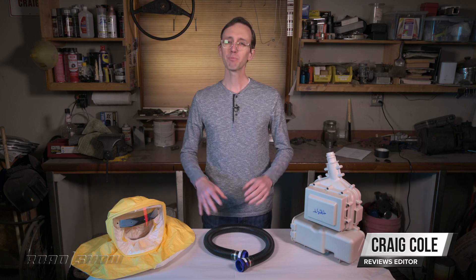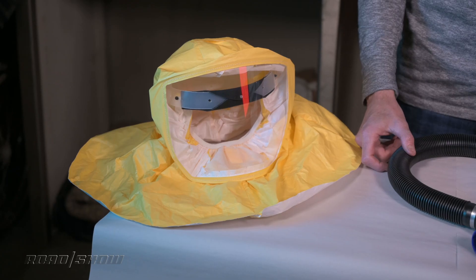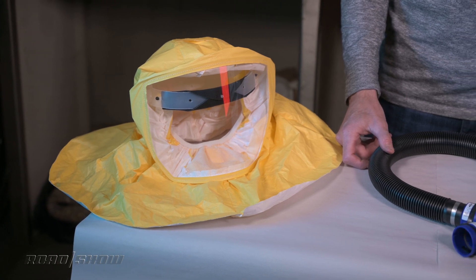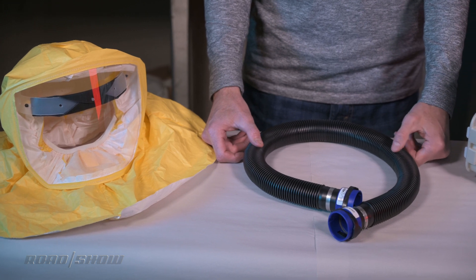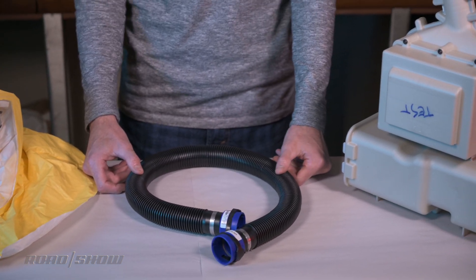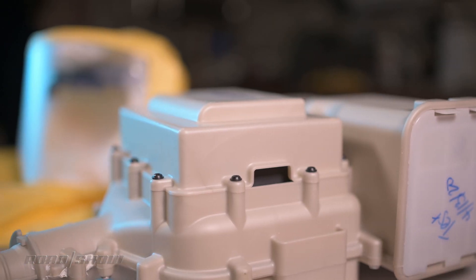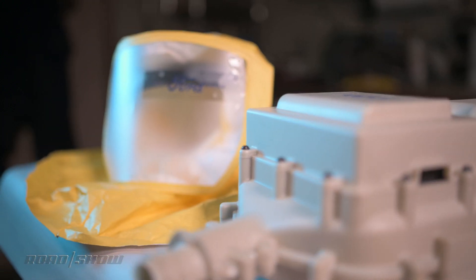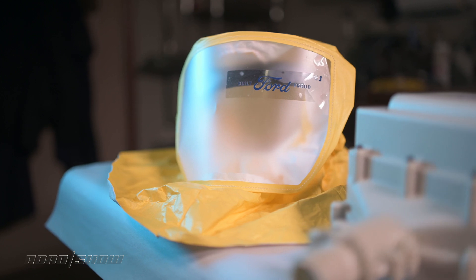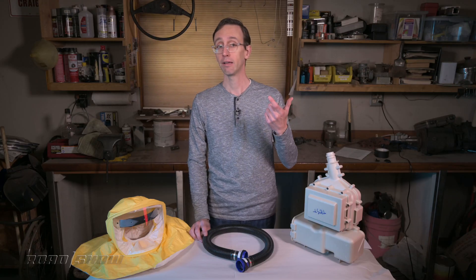This is a Powered Air Purifying Respirator, a PAPR for short. It was designed and built by Ford to help medical professionals and first responders stay safe during the ongoing coronavirus crisis. Now, just to be clear, this one here is only a demonstration unit intended for training purposes — meaning nobody at a hospital is going without a respirator because we're producing this video, which we happen to be shooting in my personal isolation chamber, aka the garage.